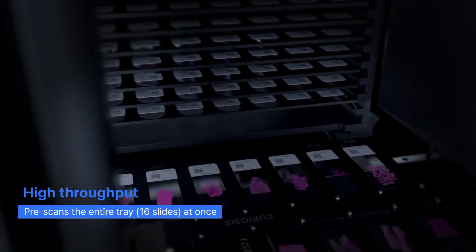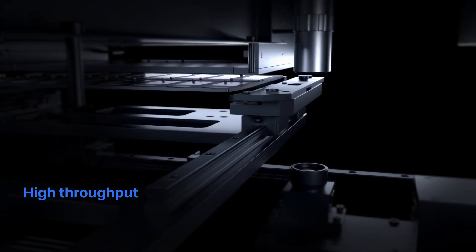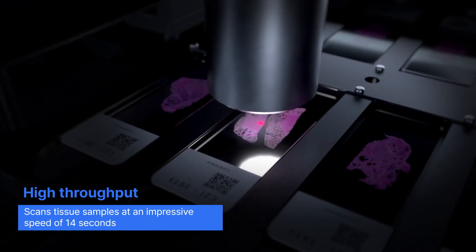The MSP320 pre-scans 16 slides at once, taking only 14 seconds per slide with its tray transport system, significantly reducing the overall examination time.